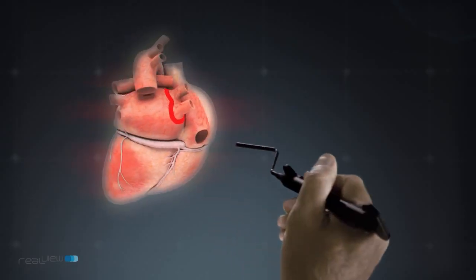You can mark a point or draw a path in the hologram, and tag specific anatomical landmarks in mid-air.